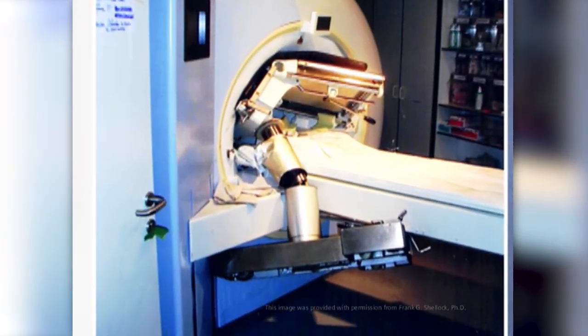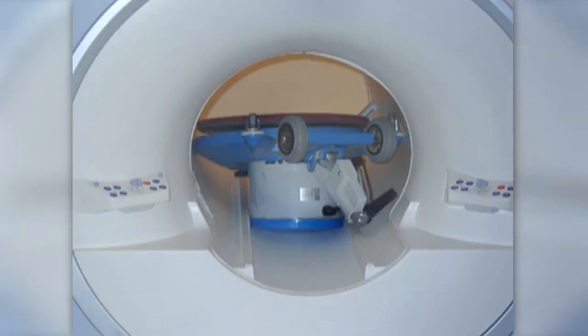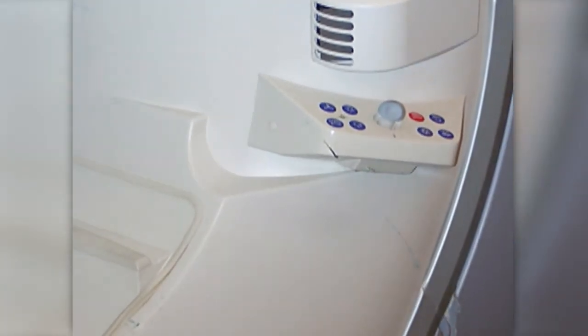This or similar accidents can also occur on your MRI system if you fail to observe the safety regulations. With our products of the Magnetom family, we put patient and staff safety first. This video provides medical personnel with an overview of the basic safety precautions to be observed when using a magnetic resonance imaging system. You will be introduced to different magnets and learn how various magnetic fields affect people.